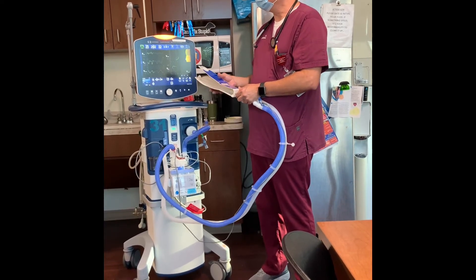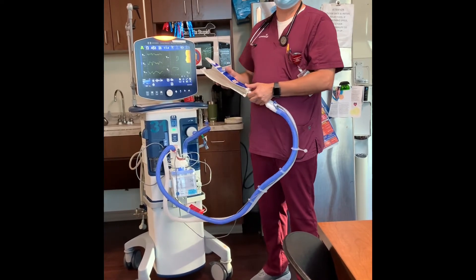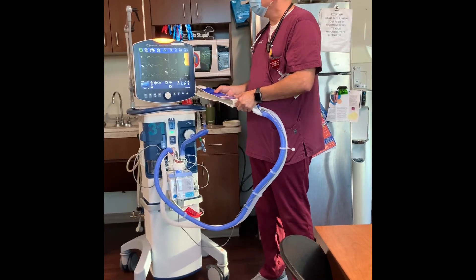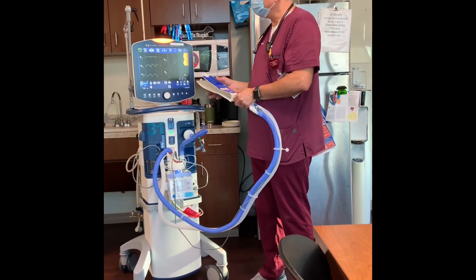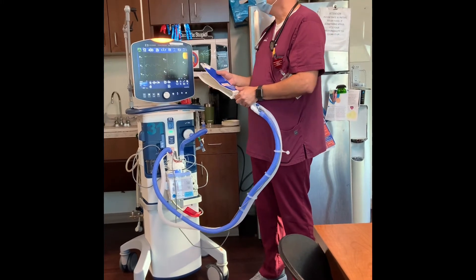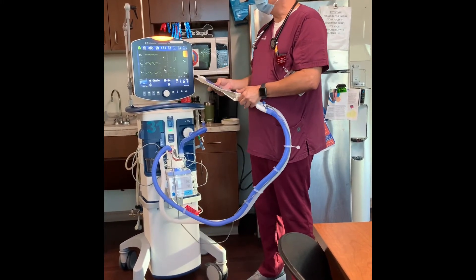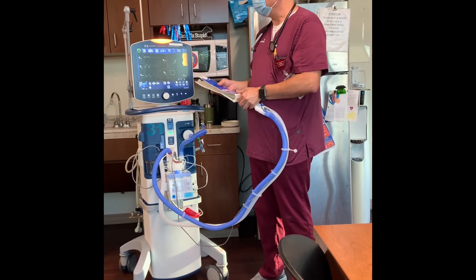A low priority alarm is a single beep — just one beep like that. That's an informational type of alarm, just saying something happened outside of my alarm parameters. It's more for information, but a low priority alarm like that can escalate to a medium priority alarm.